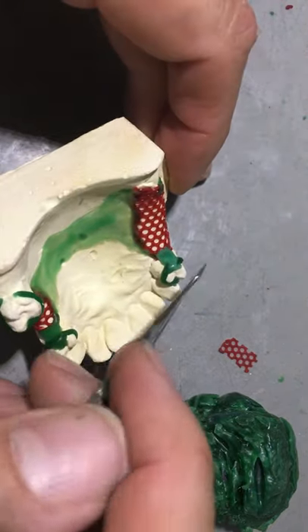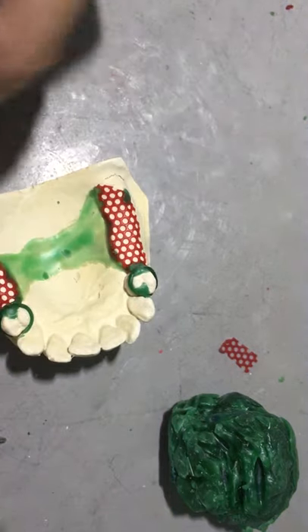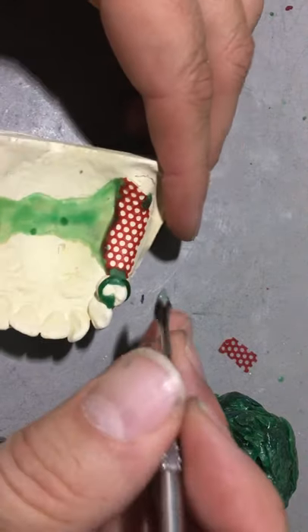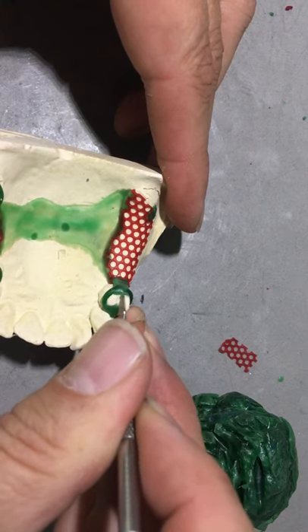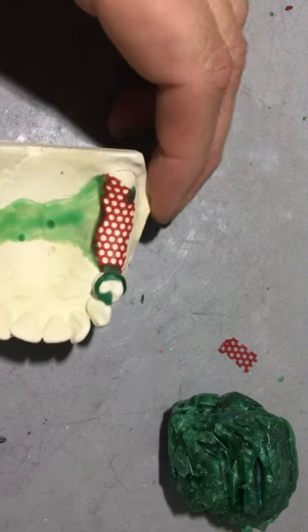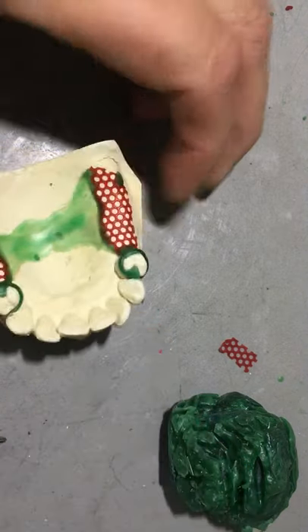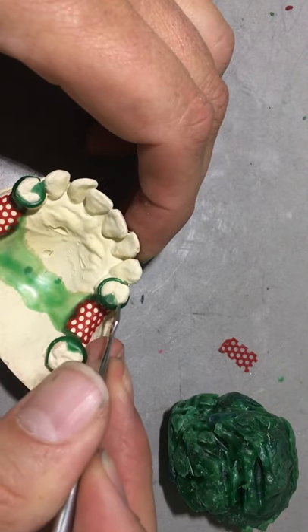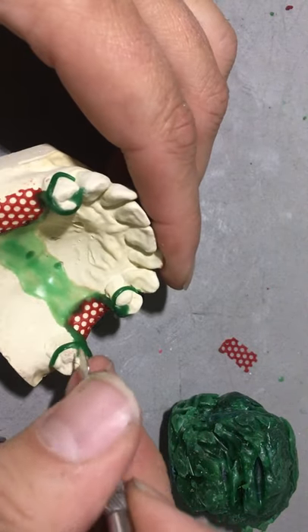To this point, really nothing different than what we've been doing. Possibly the maxillary lends itself to a little bit of a different lattice retention - we're going all the way to the back, unlike the lower. So I could take my Zale carver or any other instrument to fine tune the wax up. I can scallop my rest slightly if I wish. It's a lot easier trimming them in wax.